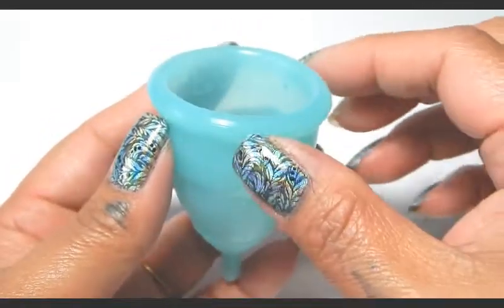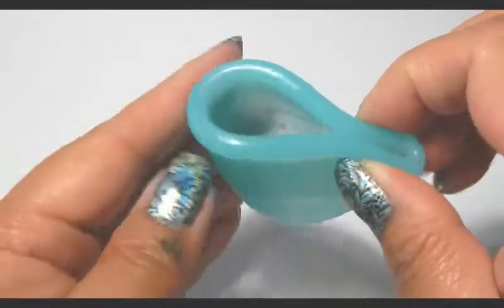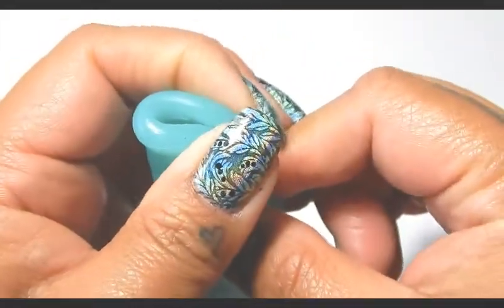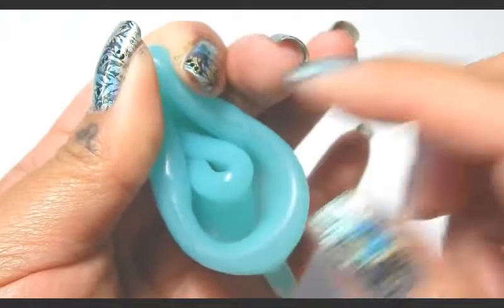Showing you that one more time: I'm going to pinch part of the rim, meet this part to the other side, and then press down. Then take the rest of the rim, pinch it together, and release my fingers from the other side. So now I have these two rings here.